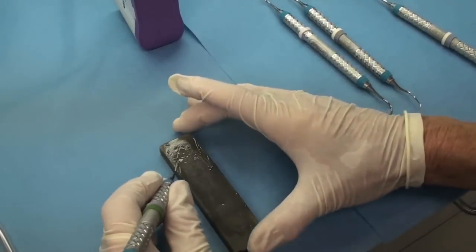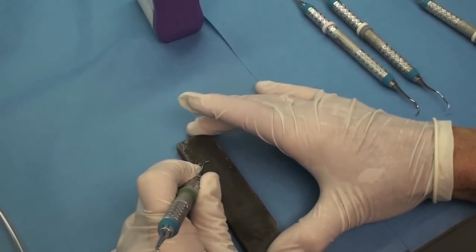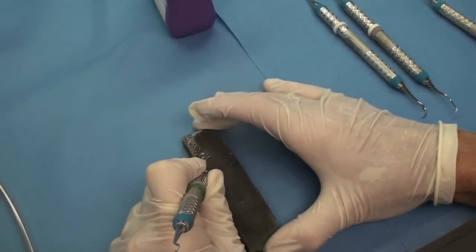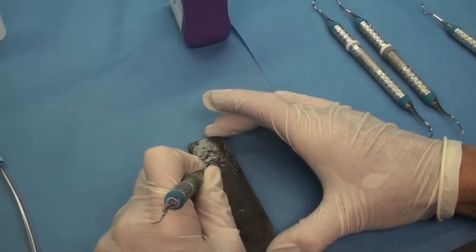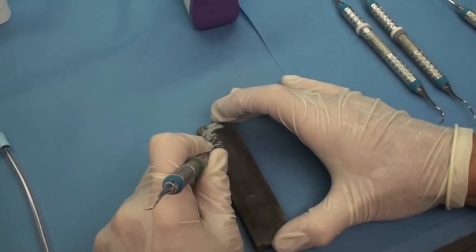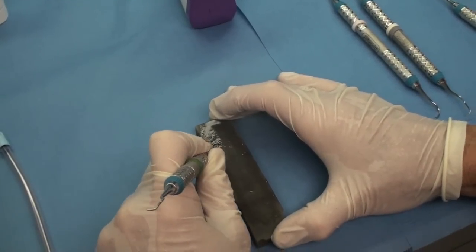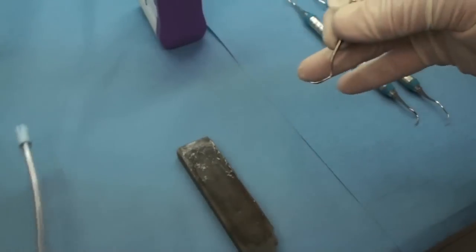Now the other side, we all have challenges with right and left sides. This side, I'm using my left hand, same thing. I'm keeping that complete blade down from the toe all the way to the back because that whole edge is a cutting edge. I'm going to pull forward. Razor sharp.